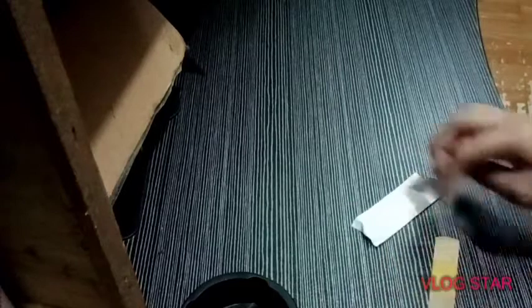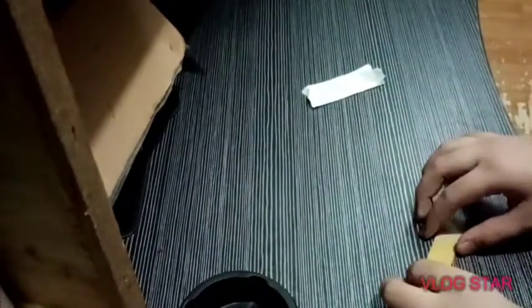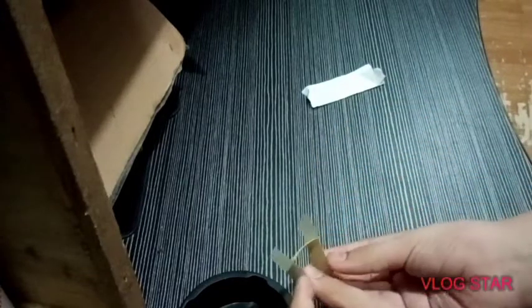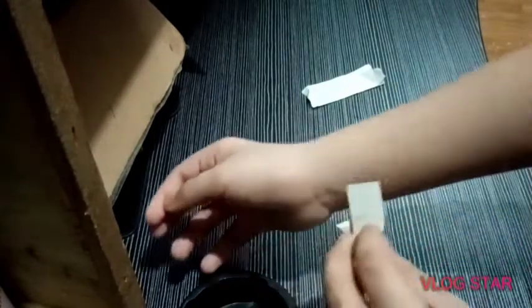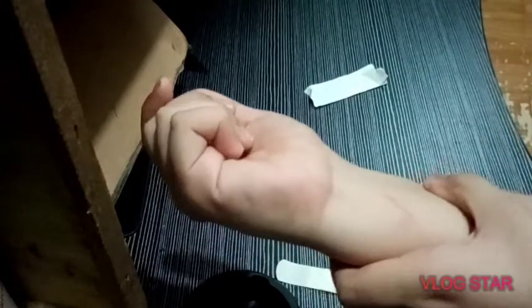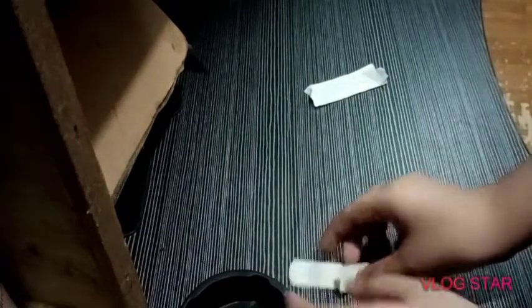So this is a nice strip. Usually to apply the band-aid, you're just gonna do this and put it to the injury, like that. Let me do it to my injury because I have an injury here. This sucks — it's not cool, but I just got this a while ago.